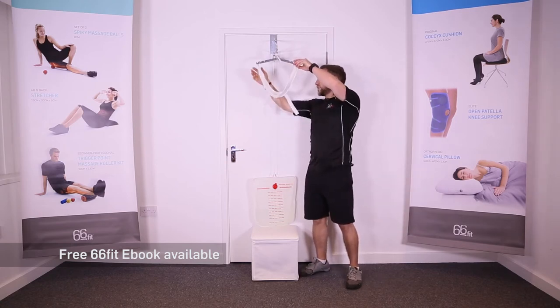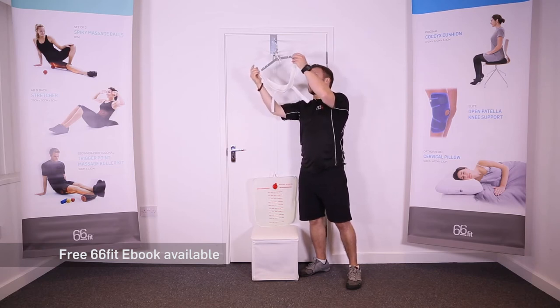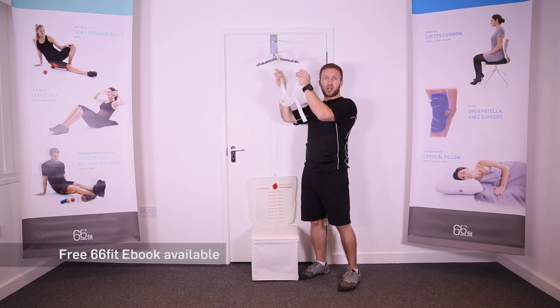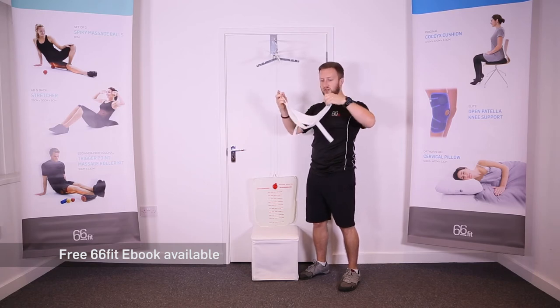Have the bag set so it's resting on a chair, because that's where you're going to sit. You can then unstrap the chin hooks. These three notches up here just move the straps in closer to your face so it hugs tighter to your face when you're in the chin strap.